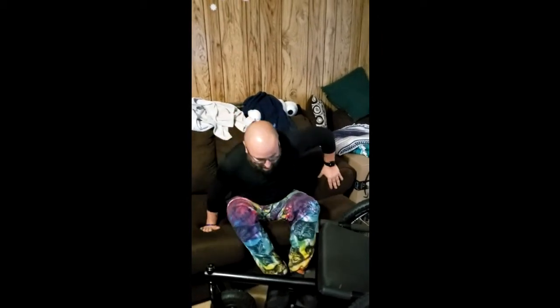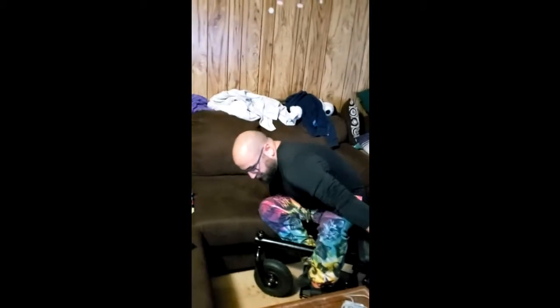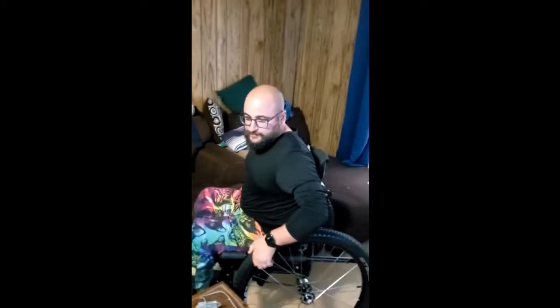How I get back up is put my legs here, scoot forward, one leg over, grab, use the hand, and press up and back in.